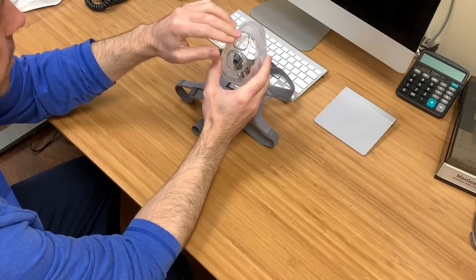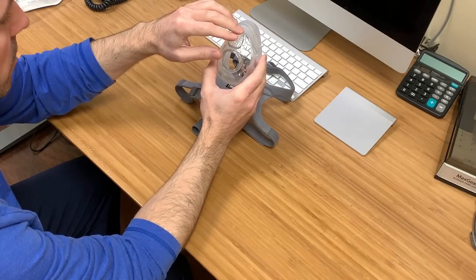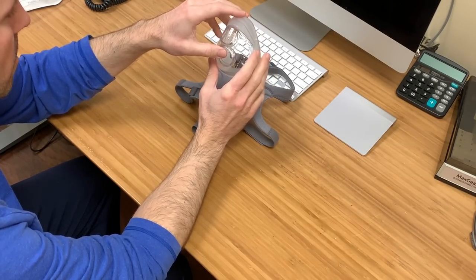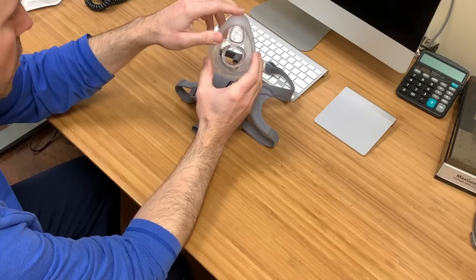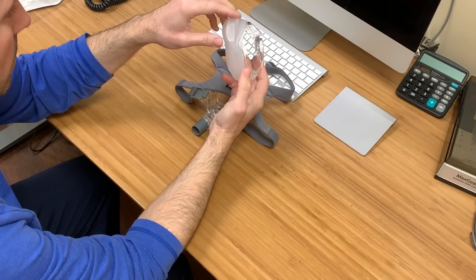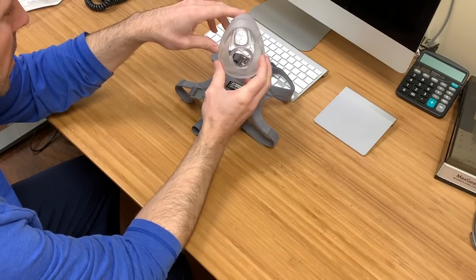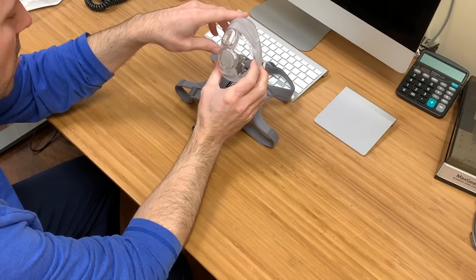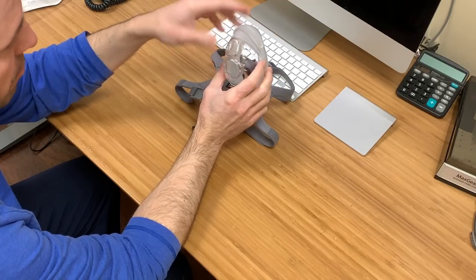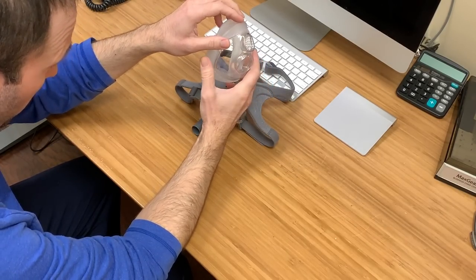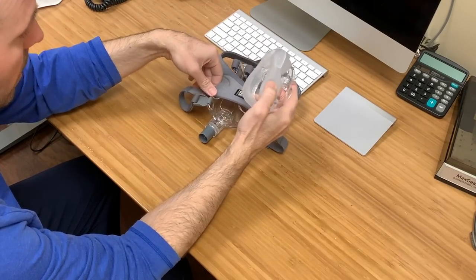Air ports for exhalation are in the front. When I first saw that, I thought it would be a lot more noisy than other manufacturers' masks, but I was pleasantly surprised at my pressure of 14 to 16. It was fairly quiet.